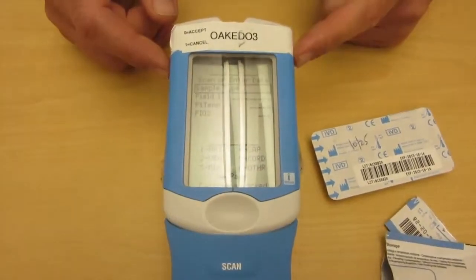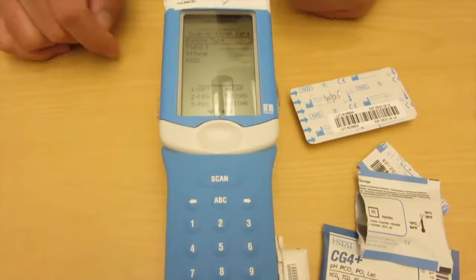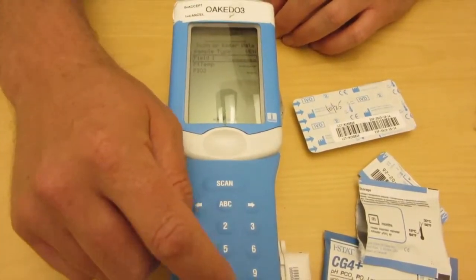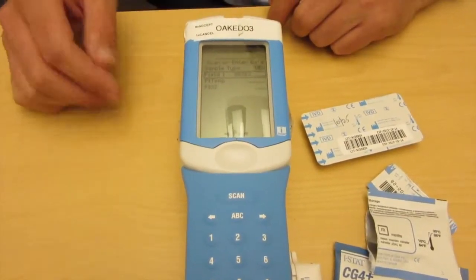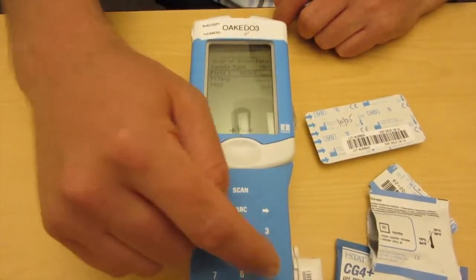After about 30 seconds, we've got our first screen. It asks what our sample type is — often it's venous, so press two for venous and then press enter. For field one at Kaiser Oakland, you're going to put in Dr. Leahy's number, 80362. At Richmond, you're actually going to scan the MD's barcode — a slightly different flow — using the scanner to scan a barcode that's presumably at the nurse's station.